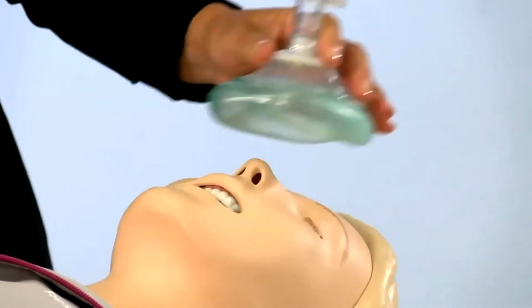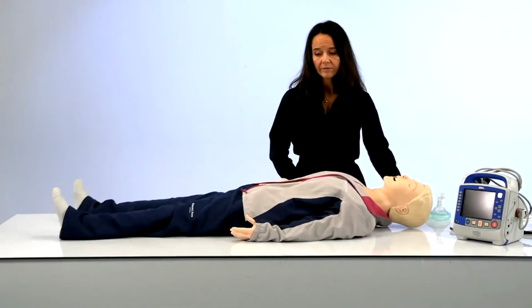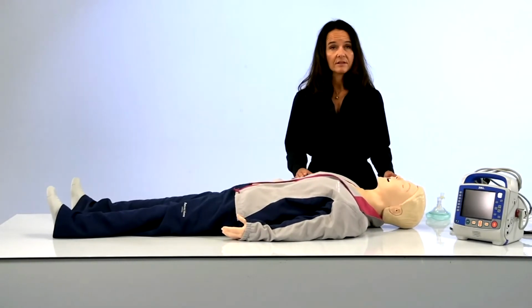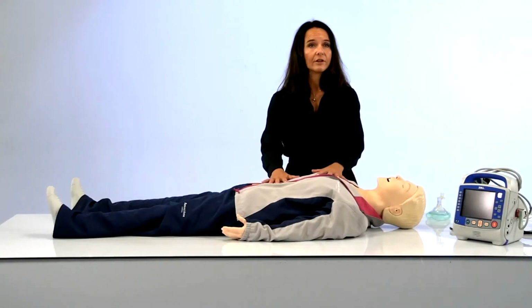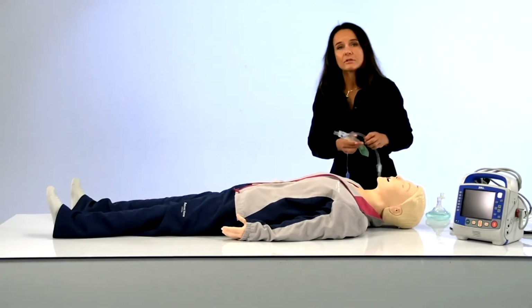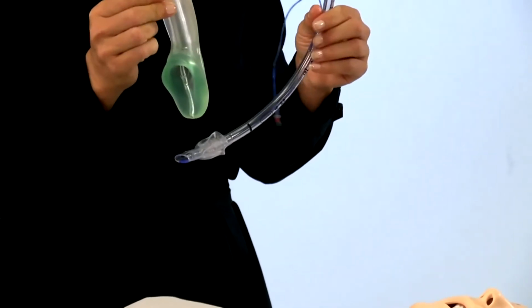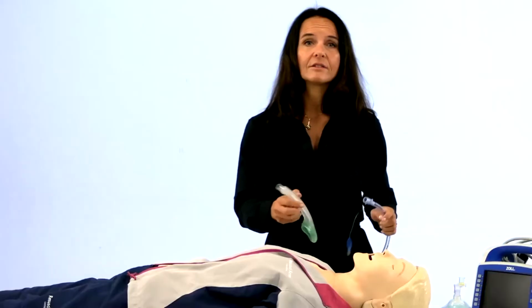The airway head is designed with high-performance CPR team training scenarios in mind. What do I mean by that? As every second counts during a resuscitation event, high-performance teams know the importance of avoiding unnecessary time off chest. By training with real airway equipment, individuals and teams can optimize soft skills like communication and hard skills like device handling. We have simplified the mannequin trachea and the airway features for this purpose.